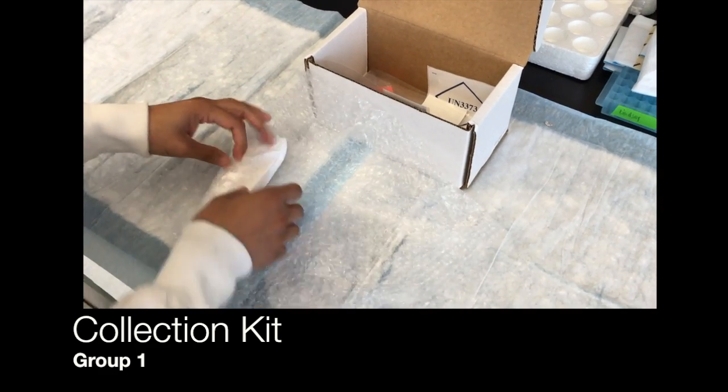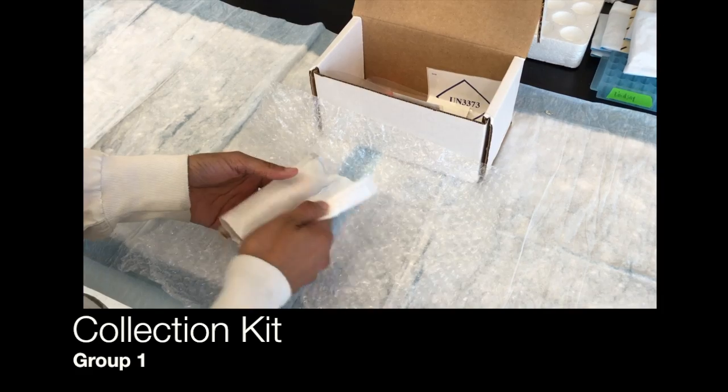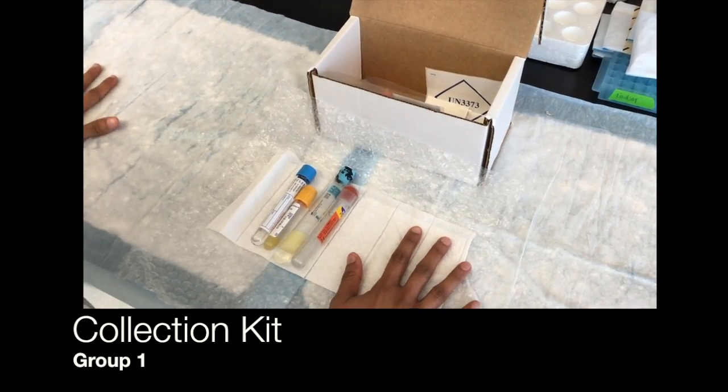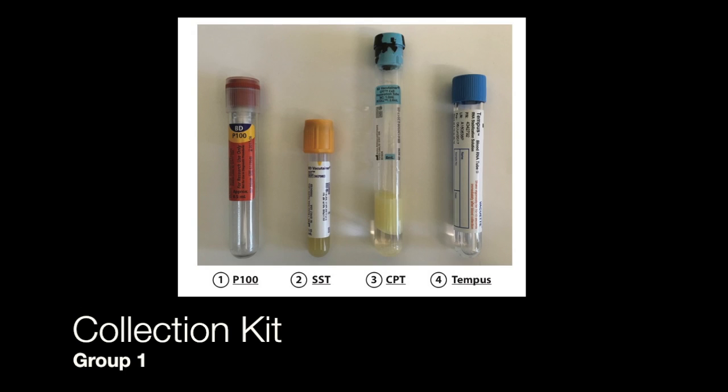Please see the shipment packing list provided, listing kit contents. You will find the following tubes in each kit, and blood samples will be collected in the following order: P100 first, SST second, CPT third, and Tempus fourth.